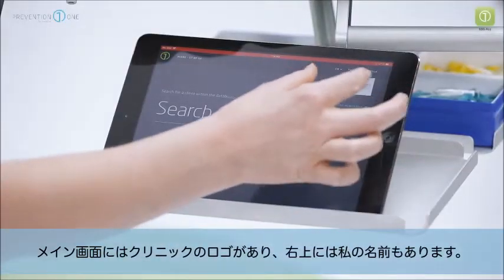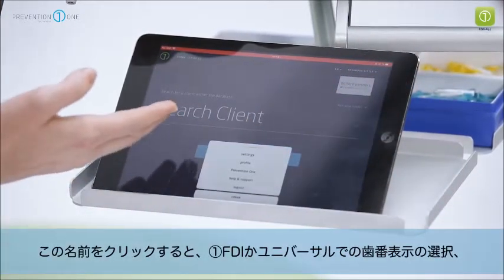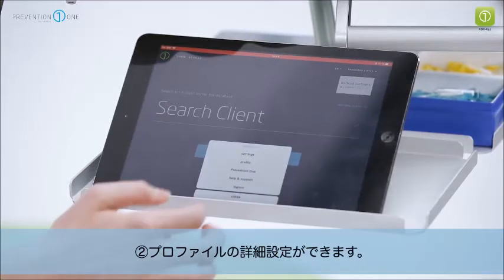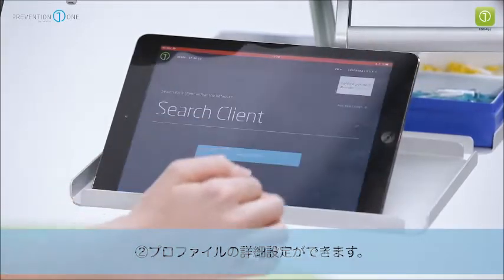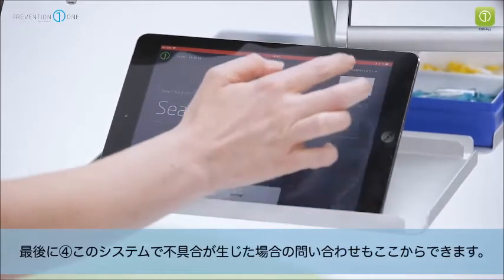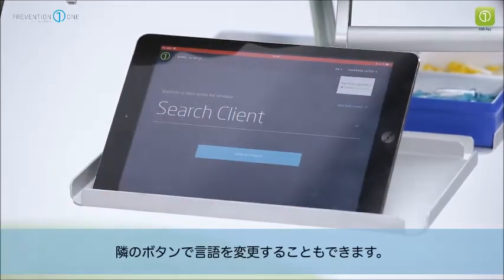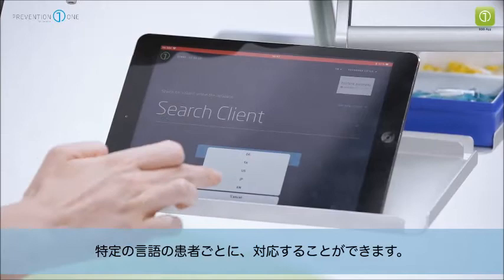On the main screen we have the logo of the clinic and my name at the top right. By clicking on it I have the options of settings, where I can change the dental numbering system either to the FDI or the universal schema. We also have our profile which we can edit at any time, a little bit about Prevention One, and help and support. If there are any issues with the system you can send a message directly to the support team. We can also change the language here if you have a patient with a particular language preference.